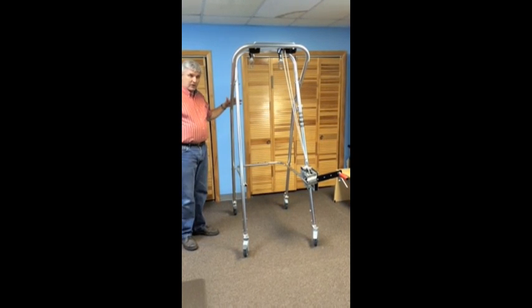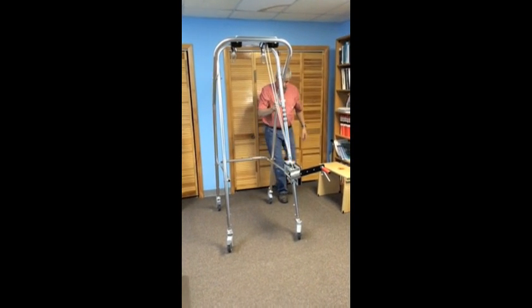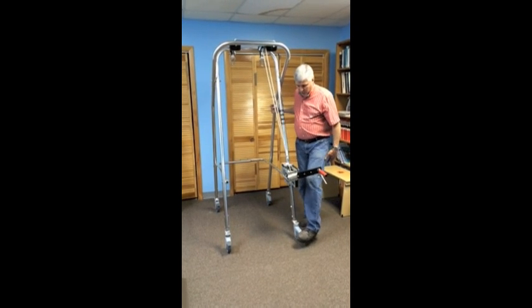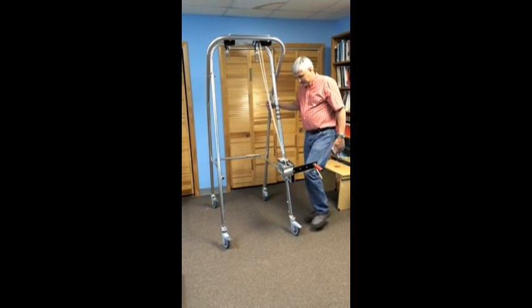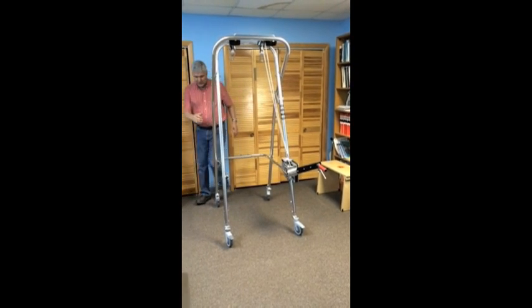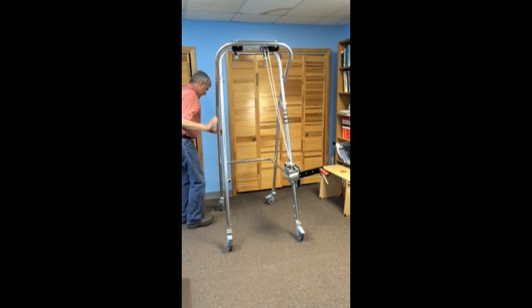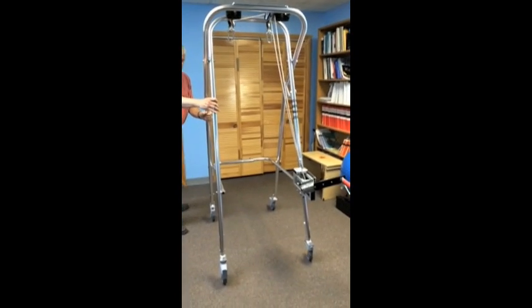The casters on the SW7 on one side are total lock casters, meaning when they're engaged, the wheels lock to be pointed straight ahead and they will not roll. That is the total braking mechanism. The other side casters are directional locks only, so that if you want the client to be moving straight ahead, you engage these and the SW7 will move only in a straight line. That is useful.